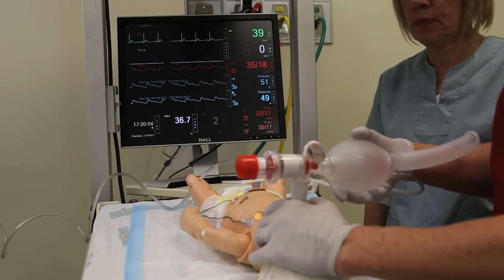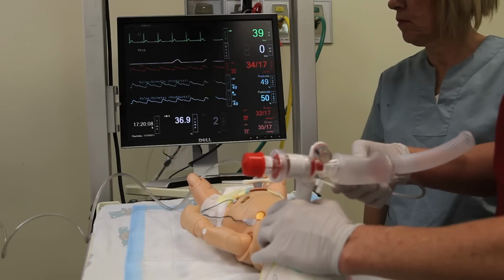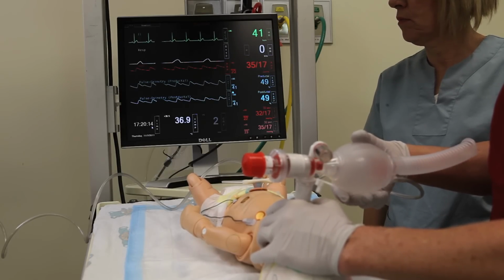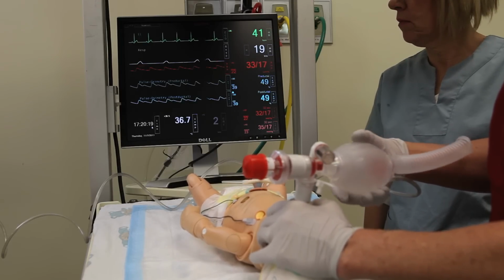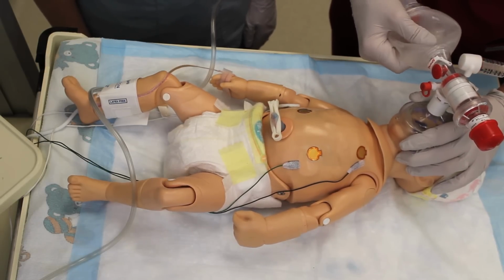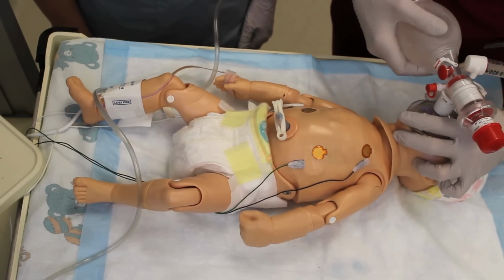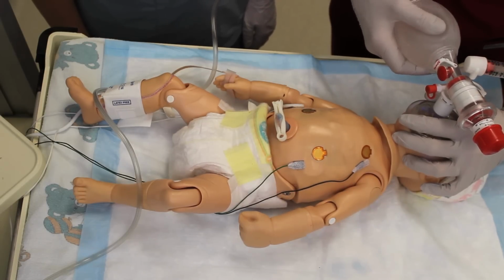When you bag the baby, if you're giving effective ventilations, you will see that conveyed on the cardiorespiratory monitor. In addition, the rate that you're bagging is going to be picked up. We can see that the number is changing from 0 as we give breaths. One thing you should know is that the head position can influence whether or not you're going to get chest rise. So if you're not successfully ventilating the baby, you have to do the same maneuvers that you would do in an infant, which is to reposition the head and even consider increasing your inflating pressure.